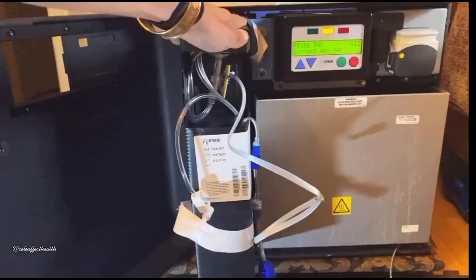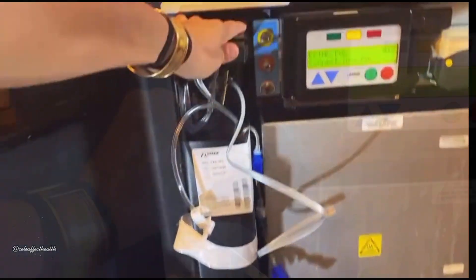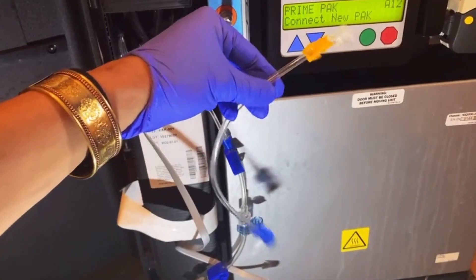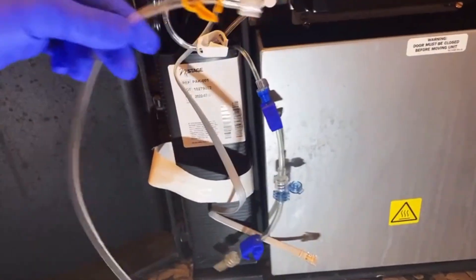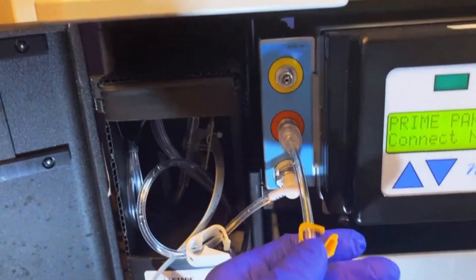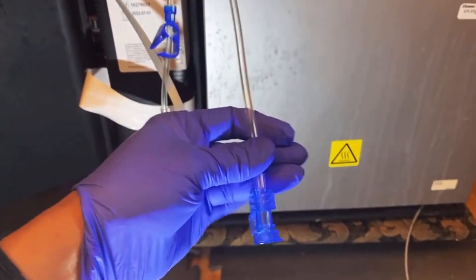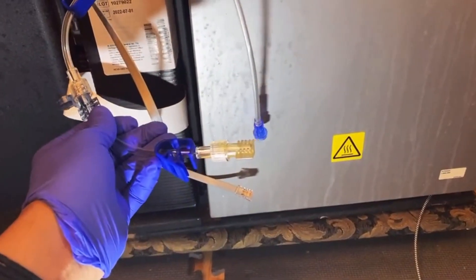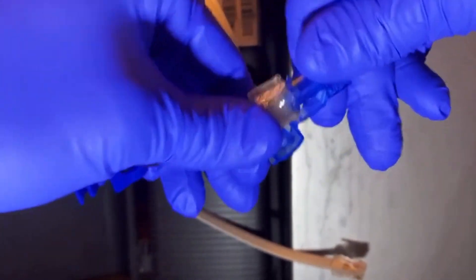Adjust the pack and slide it back in. Connect the clamped white waterline to the bottom socket. Now the orange clamp will connect to the middle orange socket. Then connect the orange line to the blue clamps as shown.